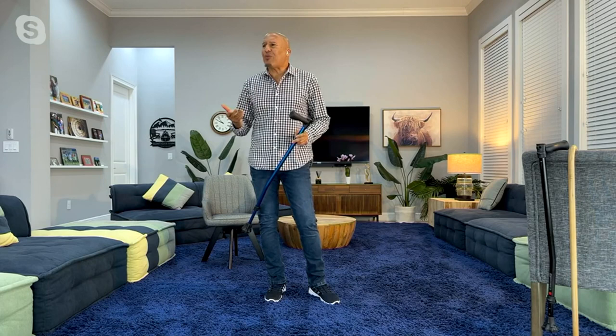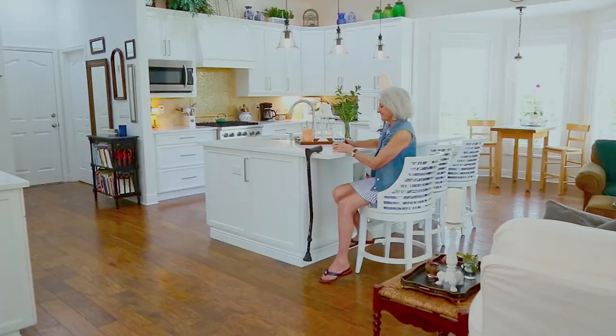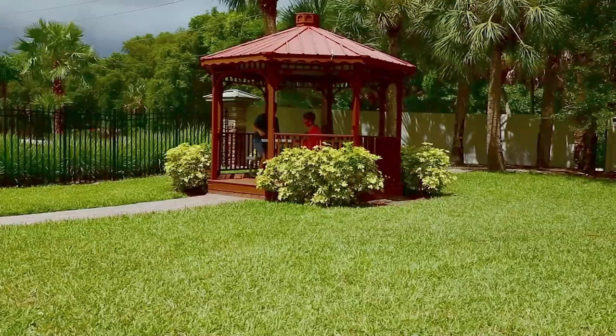Give them the gift of mobility — change their life now. And for $39.95, which is an incredible price — the price of one dinner — you're going to have this for a lifetime. Give them a chance to do something different. It's engineered to stay with you. It's got a wonderful finish and it comes in these two great colors. I love the blue, but the black goes with anything. I can wear my blue jeans, my khakis, my shorts. What we want with any cane like this is to make it kind of invisible.